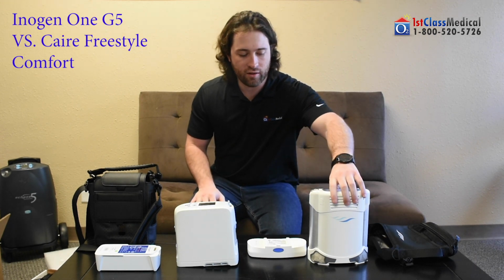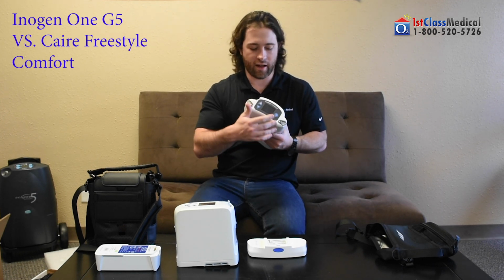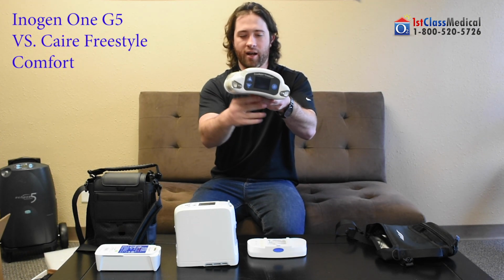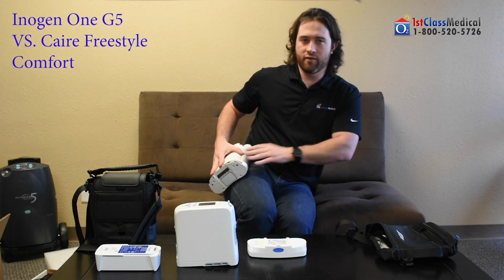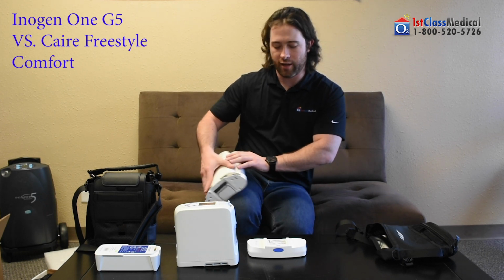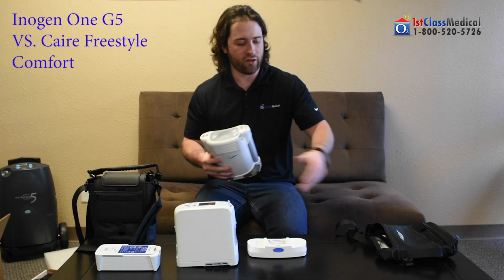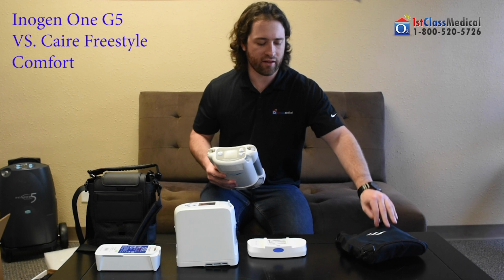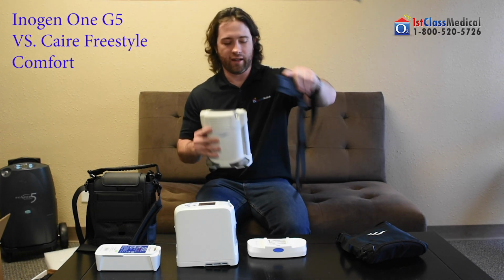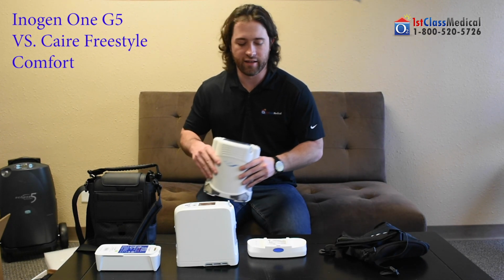As far as the two units, one thing that's kind of cool about the Caire Freestyle Comfort is the slick design here. You can see it's a little angled, or curves. They made it so that when it's being held, it's really comfortable, going against your waist or your hip. And another nice part that no other concentrator has: if you don't feel like using the actual carrying case, you can put the shoulder straps on these little latches here, and carry it outside of the carrying case.